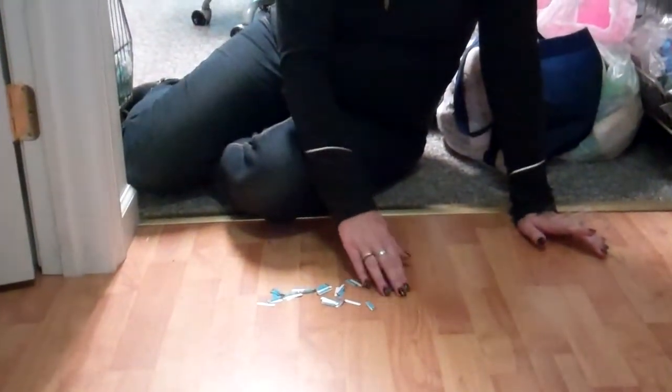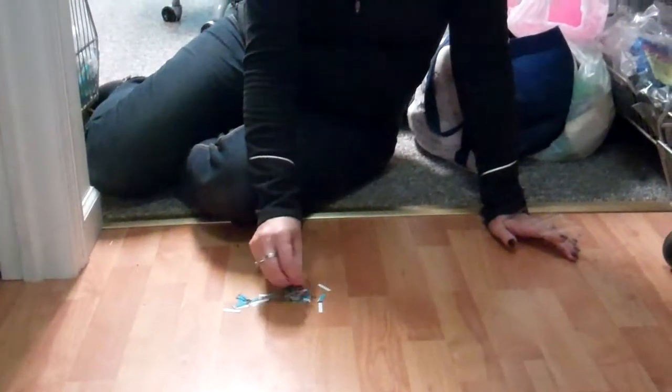I don't know about you, but I am forever picking up test strips throughout our house, and I've even had occasions where they've spilled — a bunch of them on the floor or the carpet or whatever. And especially if they fall on the floor, scratching and trying to pick up these test strips is difficult.